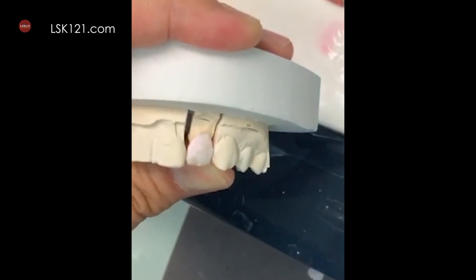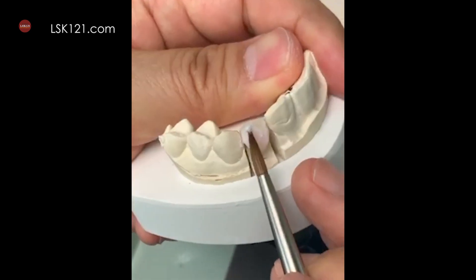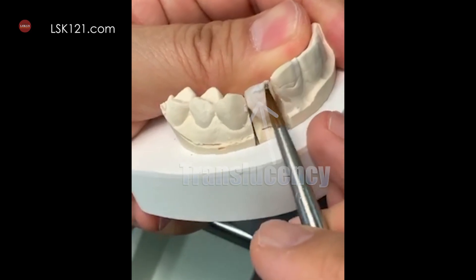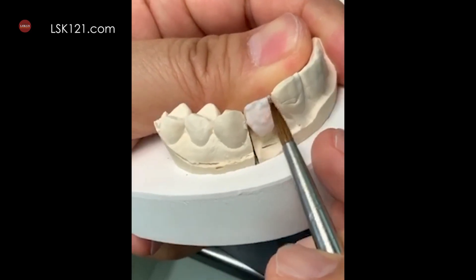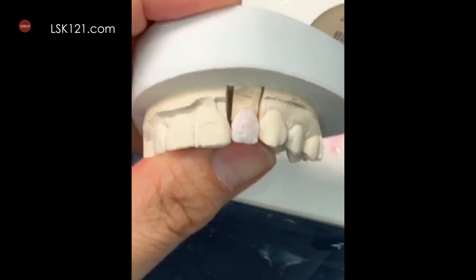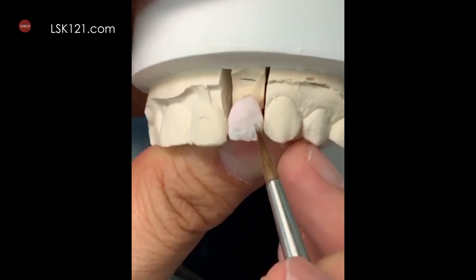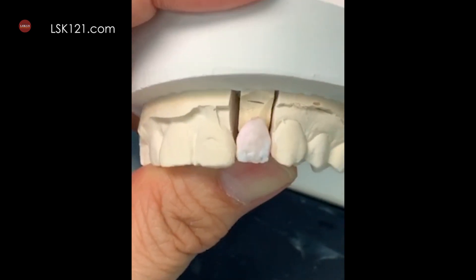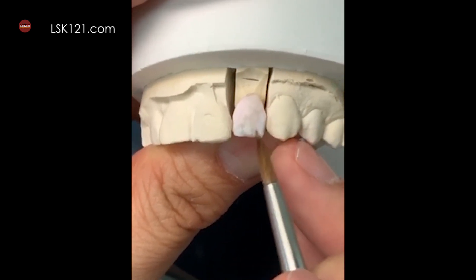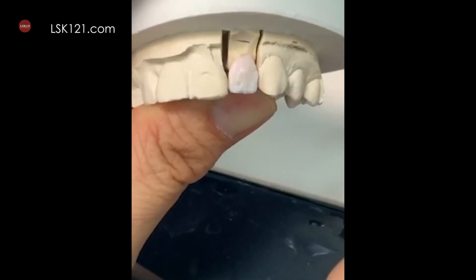Here's another key point — I see a good amount of translucency here, so I'm using just a little bit of blue. Also slightly moving here too, just a little bit — this is very strong. However, I'm good with the frame design color. After that, I just want to make sure.